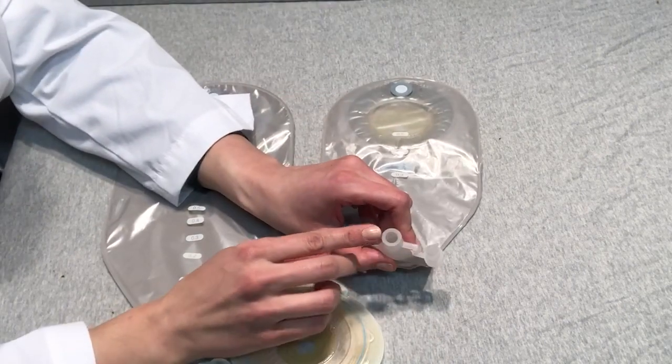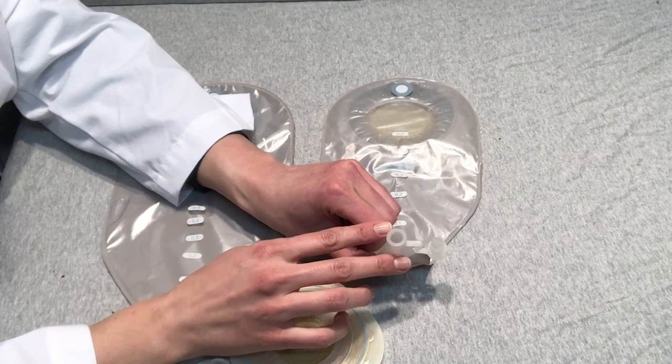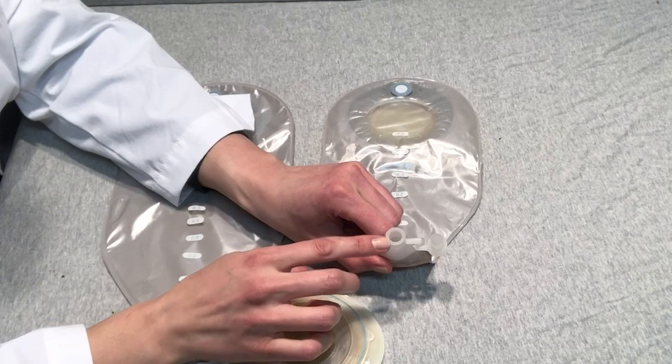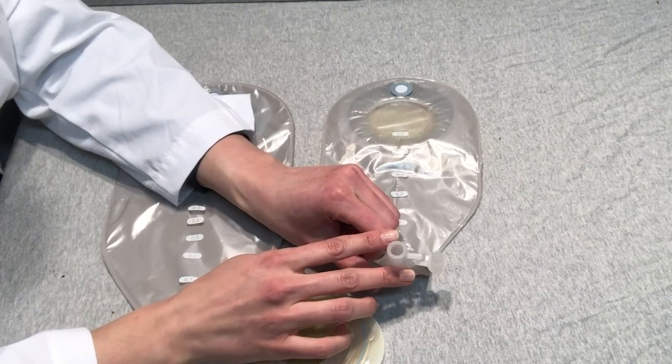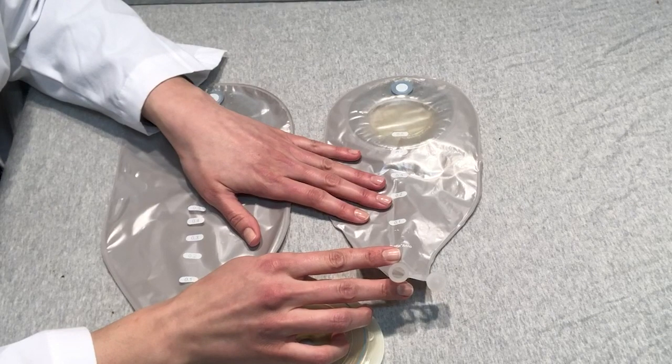And then we have a soft outlet. What that means is that this particular outlet can connect to bedside drainage, especially if their stool is pure liquid. This is a great way to keep the patient mobile so that they are able to connect to something while they are having their high output.